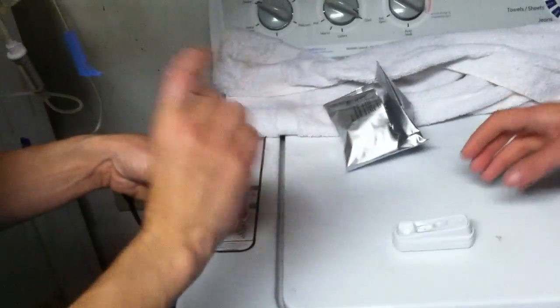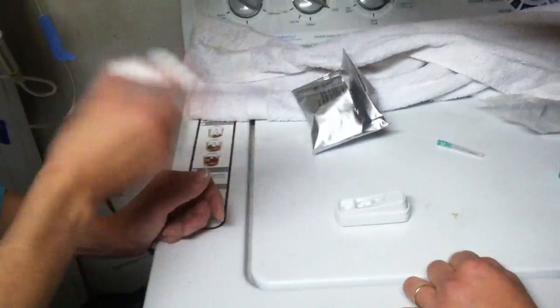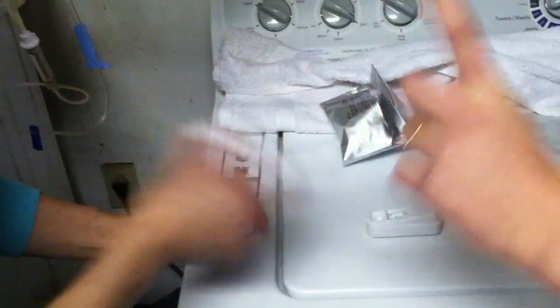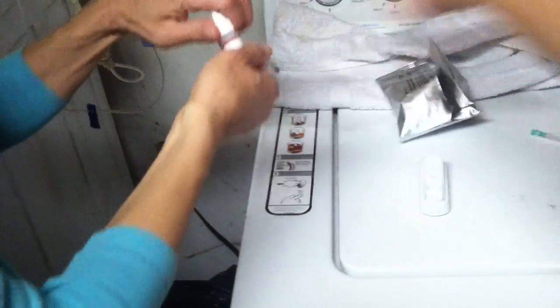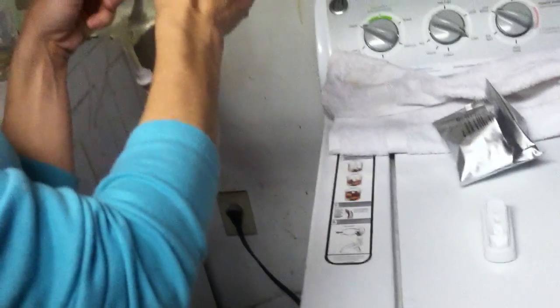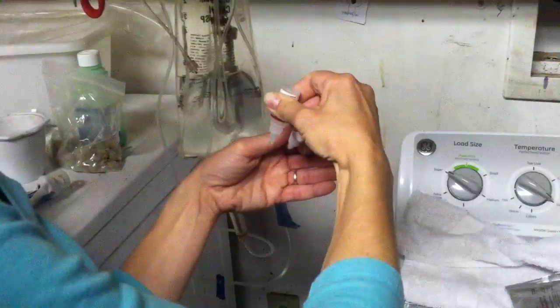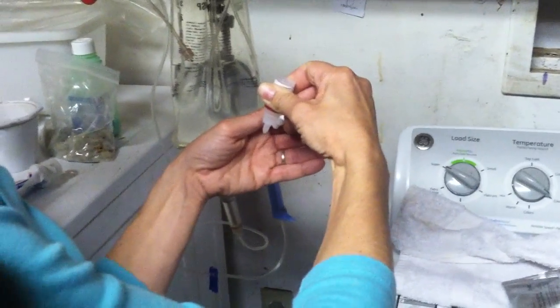While you're shaking it, I'm gonna walk you through the next step. You're gonna take 10 drops and just put them in the garbage can — you're getting rid of the first 10 drops. After that, you see the first, second, third dot — the blue dot closest there. You want one drop to completely cover that dot, just one drop, and it has to completely cover it. You should take a picture of that. Now you're done shaking. So now get rid of your 10 drops — one, two, three... six, seven, eight.